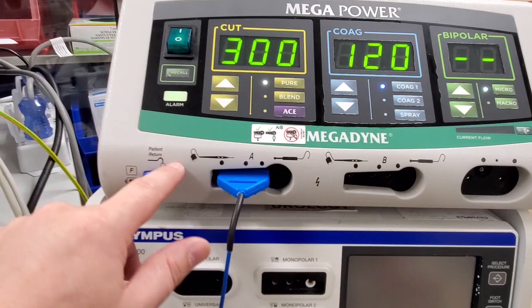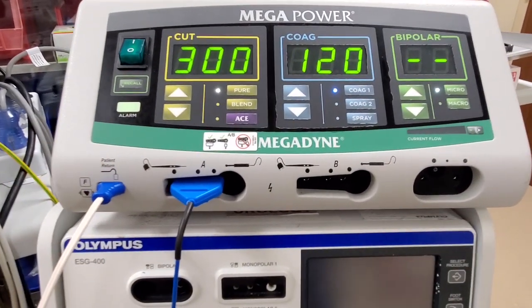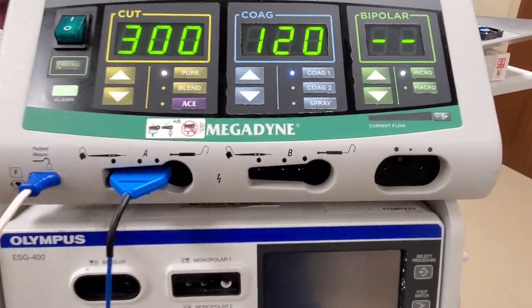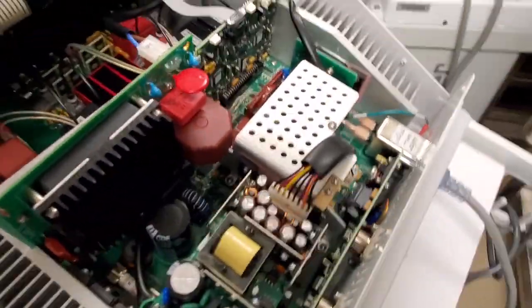Unusual as it is, I'm really concerned about having the loose sockets on the rim, because that means that you were not getting accurate patient return electrode resistance, so you could have got some pad peel, and you never would have really known about it.